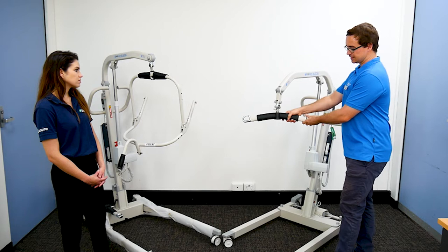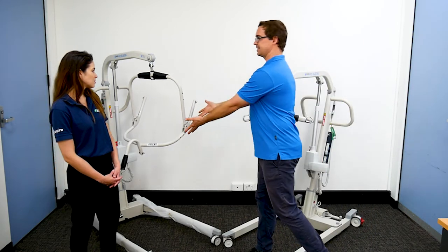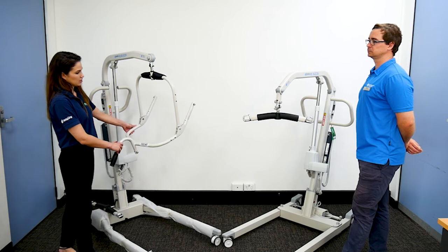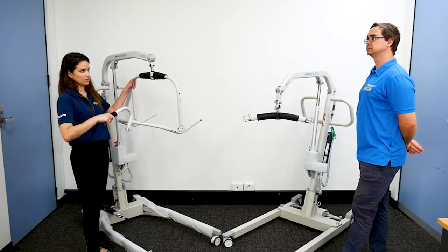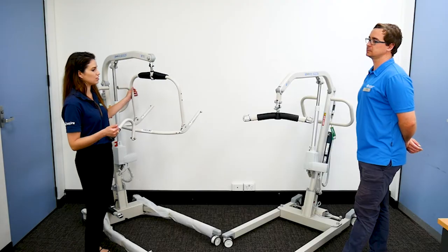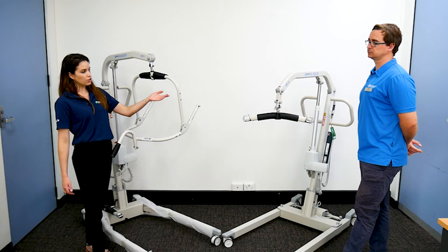Why would we use this type of bar versus this attachment? So I tend to think of a pivot frame — we can change someone's position in the sling by using the pivot. This one here is the manual pivot frame; we do also have an electric pivot frame version as well, which is integrated into the hand control.